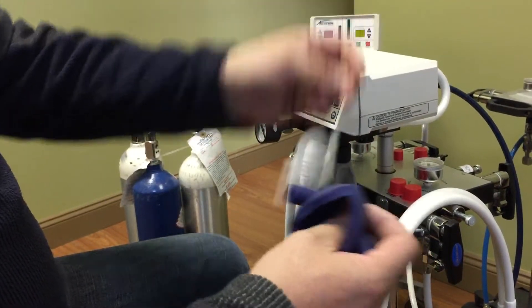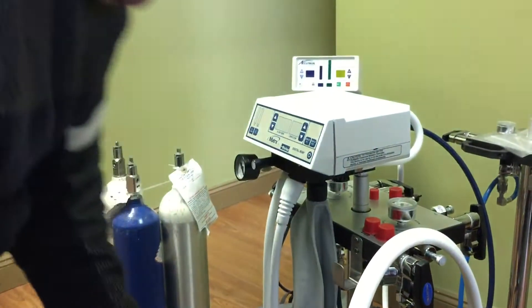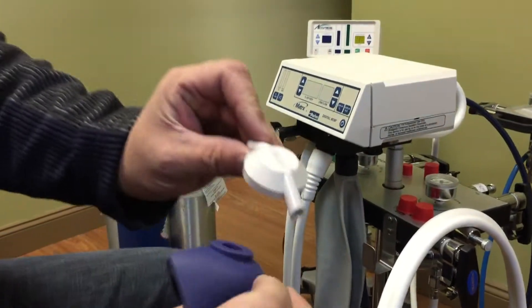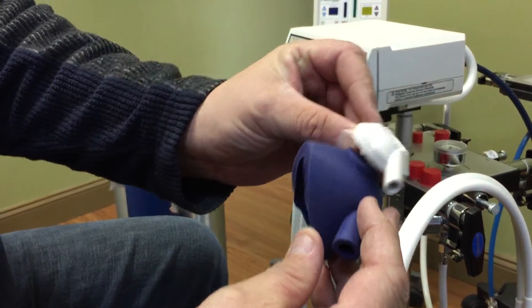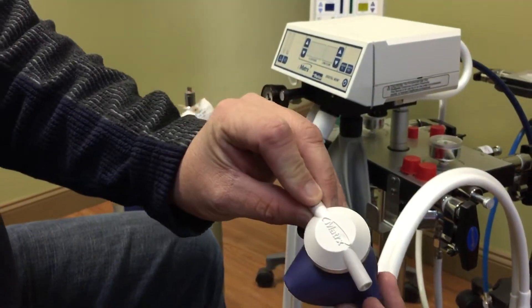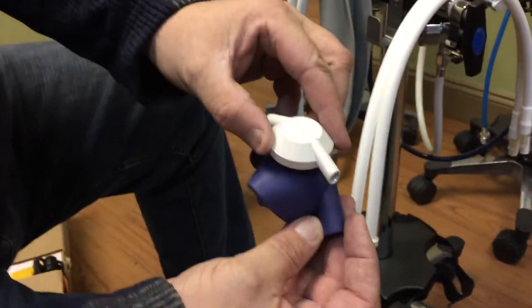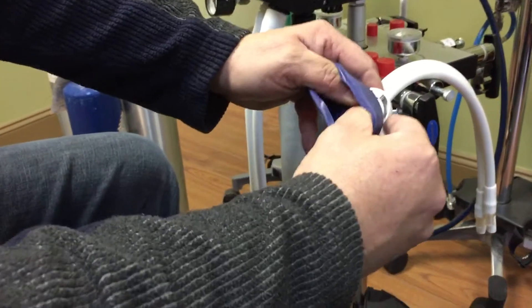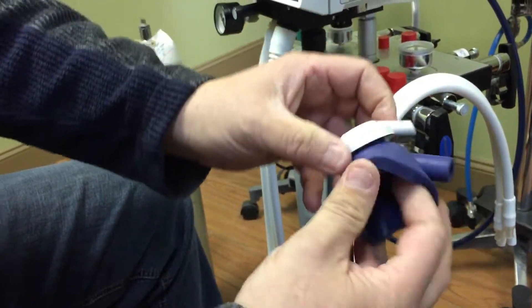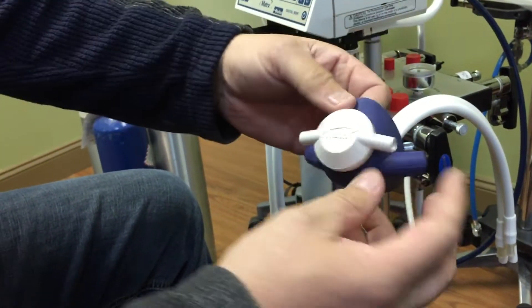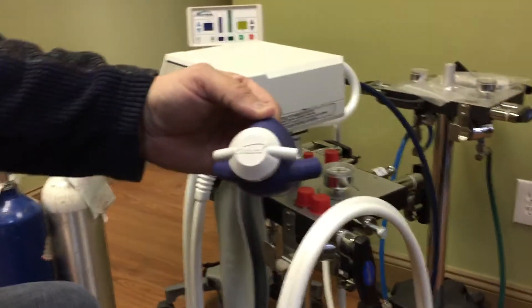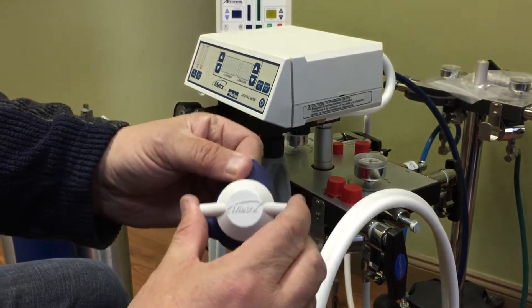What you do is you could take this cap, and again, as it would be sitting on the patient, you line up your matrix, not upside down, but the right way, like this. Once that's lined up like this, put your two fingers inside of the hole, turn around, and slide that puppy on. So basically, you want to start lined up like this, and then you're ready to go.